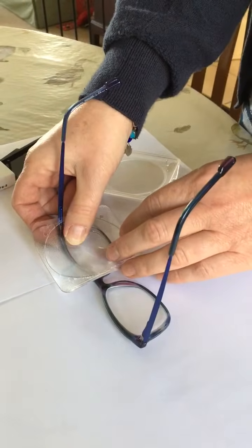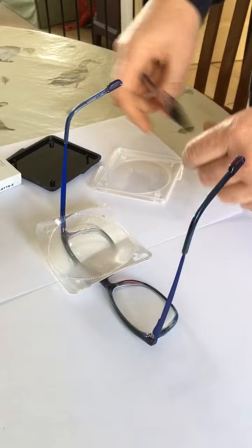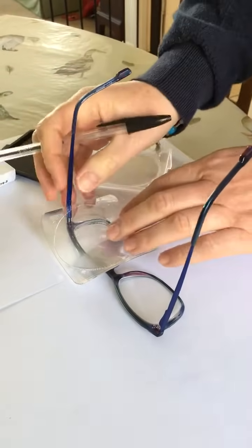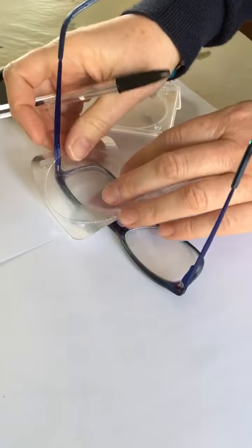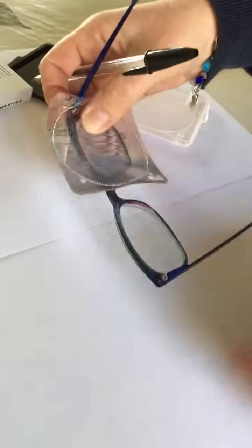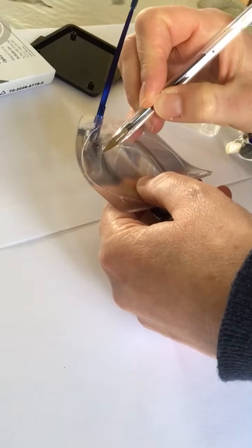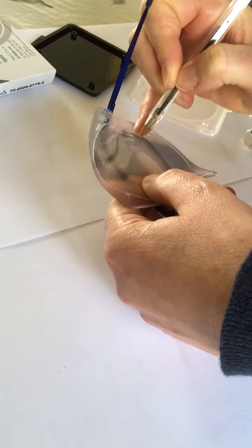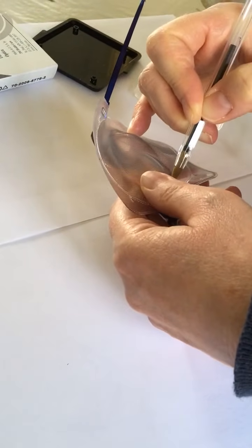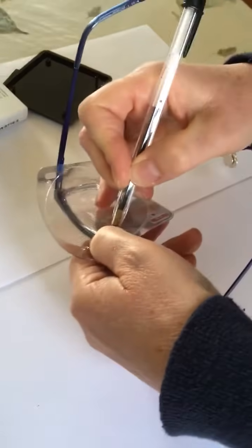What you need to do next is actually with a pen draw around the shape of the lens. Try and line it up as best you can. Keep it flat to the glass if you can — it is quite tricky, you might like to pick it up. Just draw around. It doesn't matter if it's a little bit bumpy when you're going around because the prisms are bumpy. Try to hold it with your fingers in position.